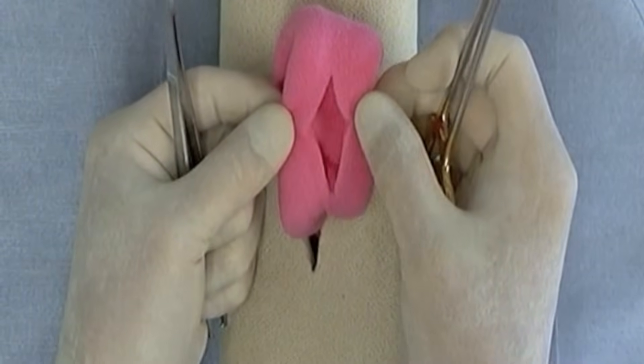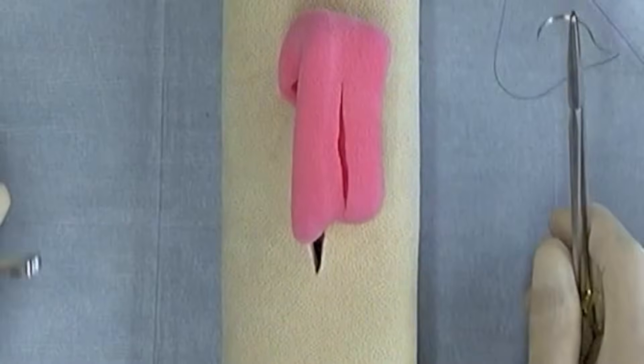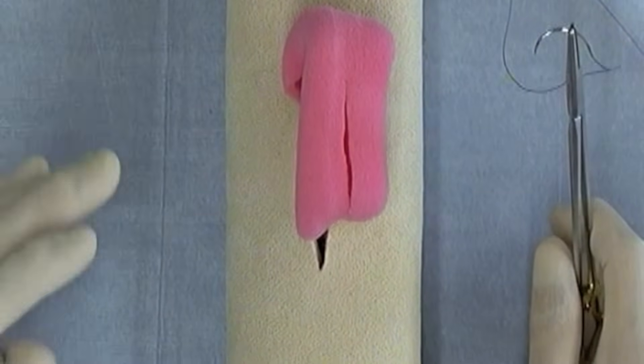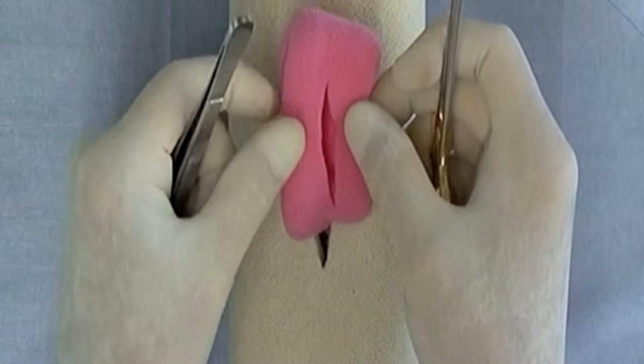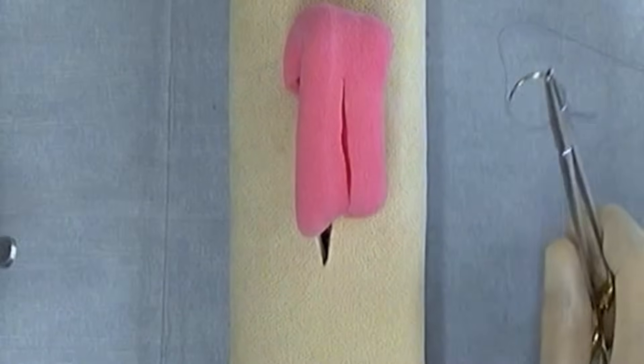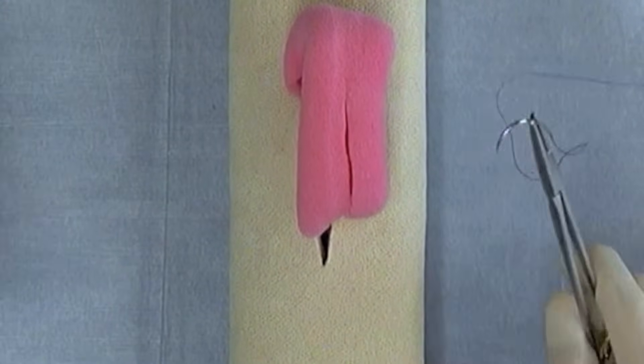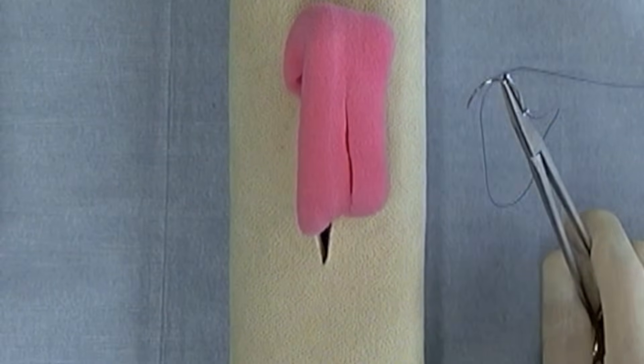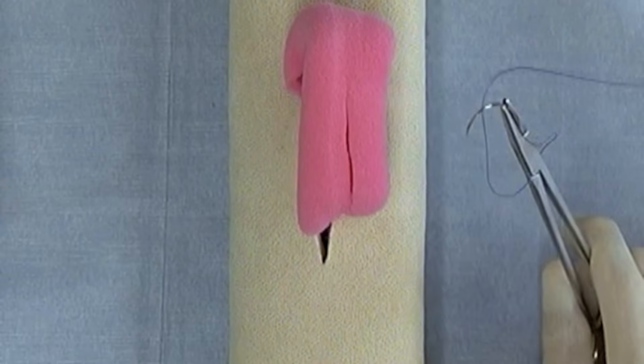What's important for this course and in life, you should remember that obviously there is a difference between a penetrating suture that penetrates the lumen and potentially tracks bacteria and digesta through the suture pattern versus a non-penetrating suture pattern. They're constructed somewhat differently, the difference being the depth of penetration of your bite.